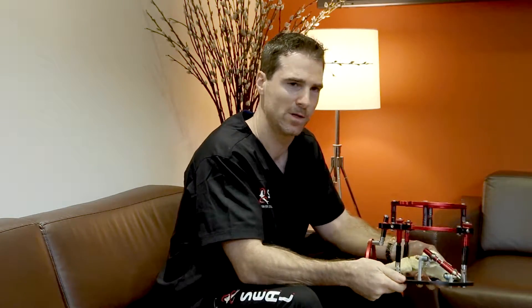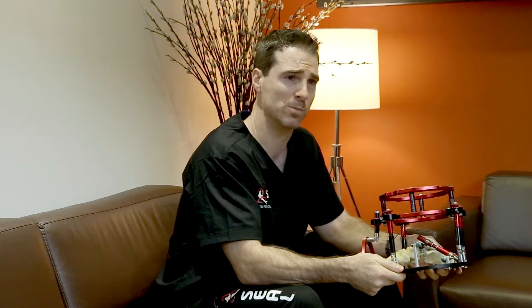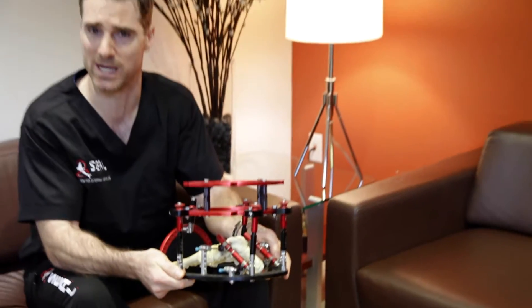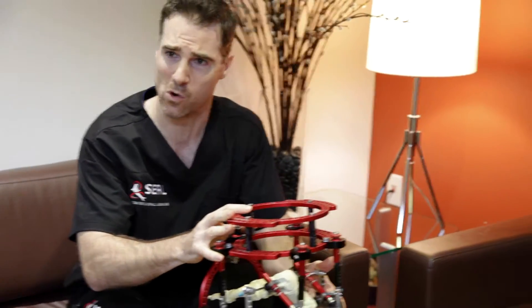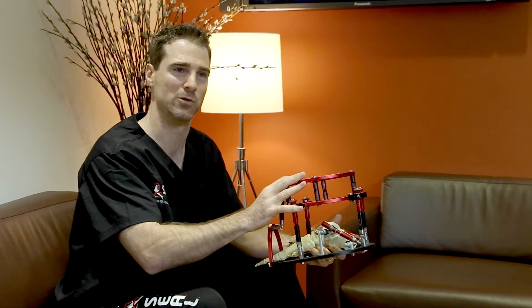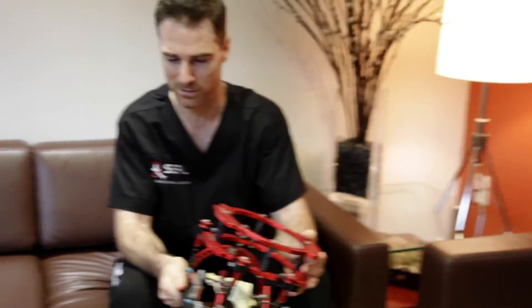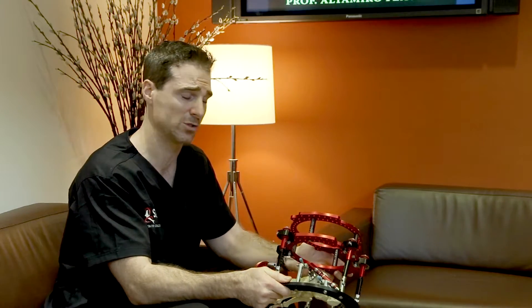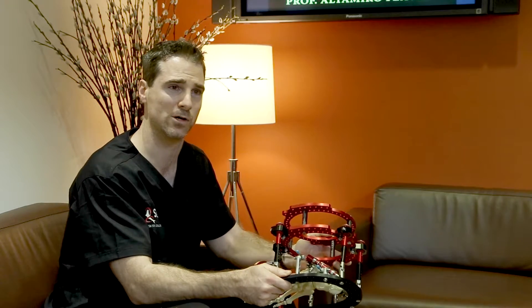We're here wrapping up our fourth cadaver lab for SEAL and DNA external fixation. Not only is this the biggest lab we've had, but what's more unique and gratifying is that the great surgeons who attend have given us exciting responses to these products, and doctors from the first, second, and third labs are returning as users and educators for new doctors attending. That stands as a testament to what I've been saying: this is one of the best external fixation frames on the market. It's the most surgeon-friendly, the most patient-friendly, and it's giving us reproducible results with multiple surgeons from multiple areas around the country.